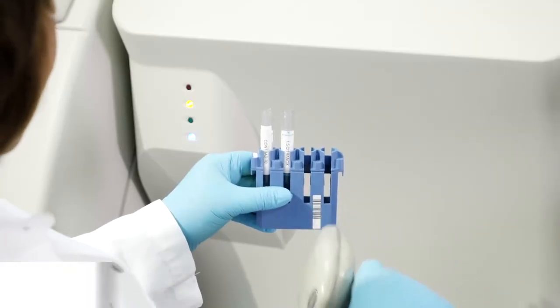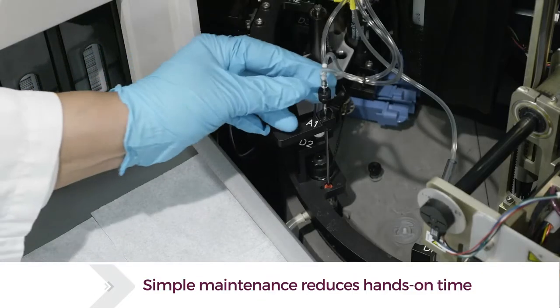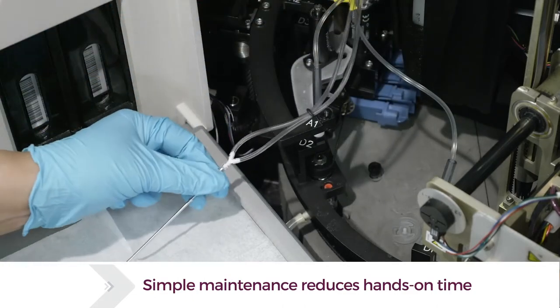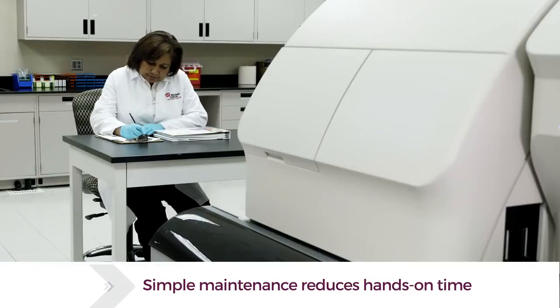Each optimized task eliminates the most common labor-intensive manual processes and only takes minutes, which frees operators to perform other valuable laboratory activities.